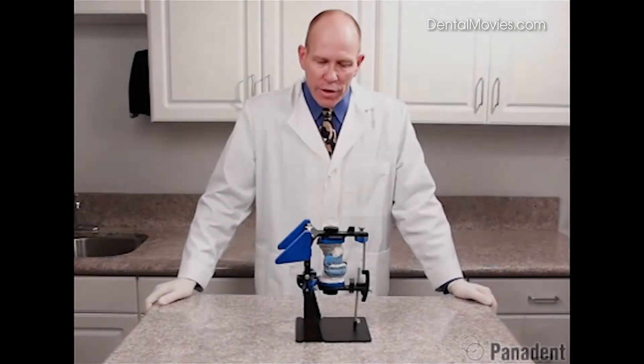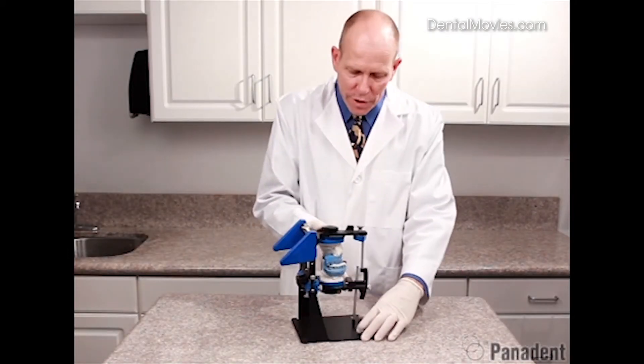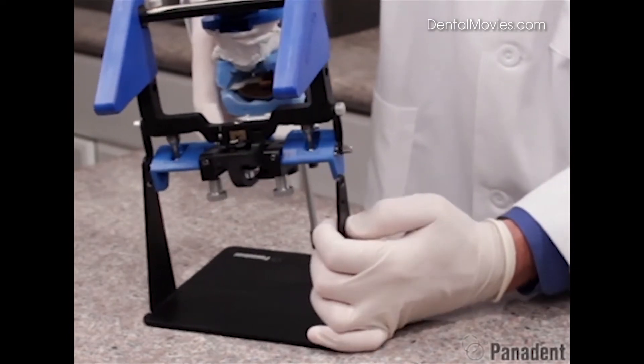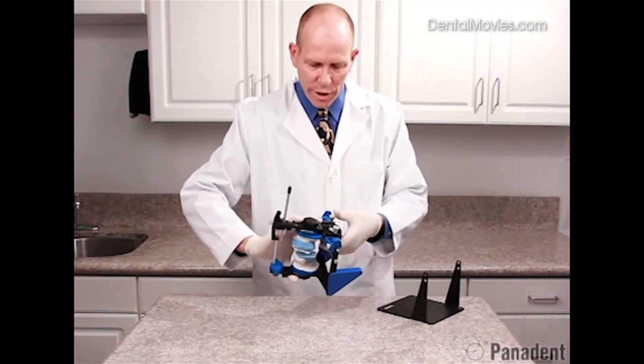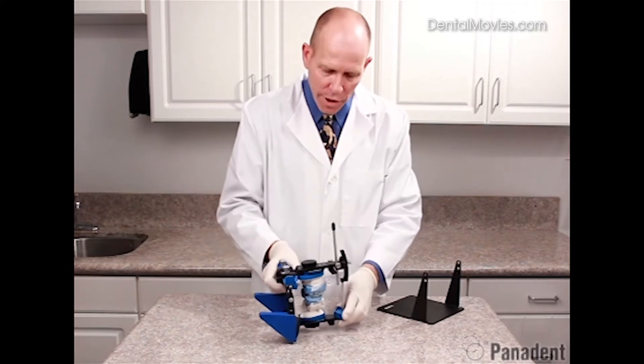The plaster is now set so we can go ahead and remove the articulator from the mandibular mounting stand by springing one side out over the Dynalink pin, then removing the articulator and setting it right side up on the countertop.